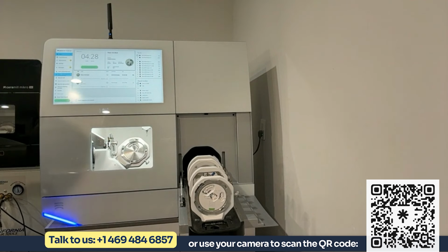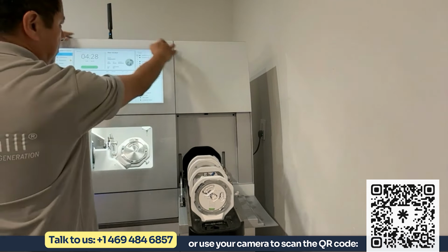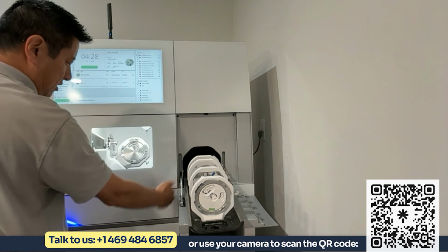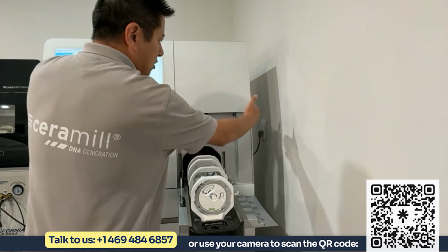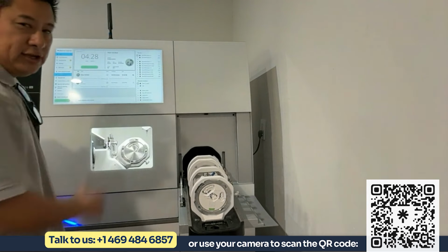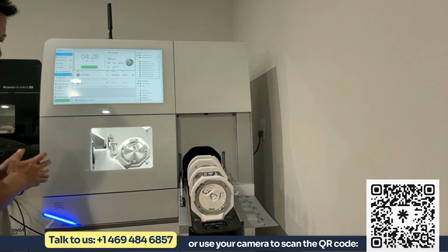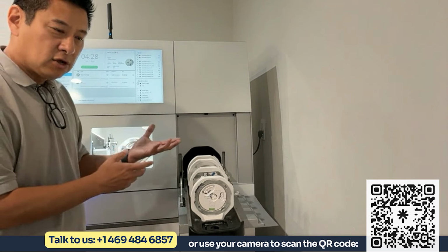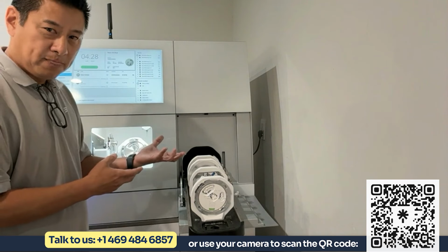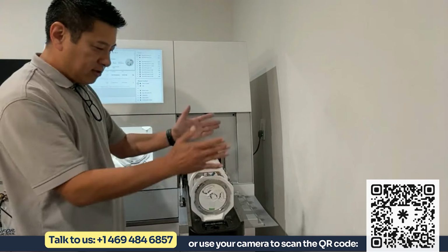And then you have the milling chamber here. So the size, common question, the size of this versus a Motion 3 is that the Motion 3 pretty much fits into this area here. So this mill has an additional about 15 inches wider here for the changer. So more automation in this mill than the Motion 3, because the Motion 3, although it can hold 9 blocks or 1 puck, this mill can load 8 pucks, or you can have 5 pucks.